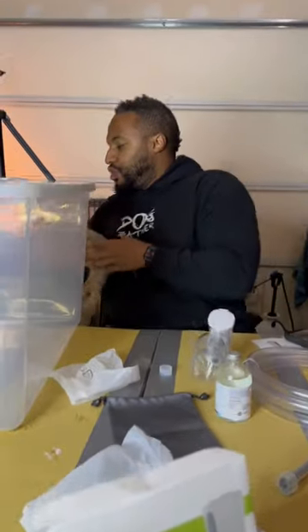So this isn't the dog that got sick, but guys, let me tell you a little bit about making a custom nebulizer, AKA oxygen tank for your dogs. This right here is a nebulizer. You're not going to make this custom.